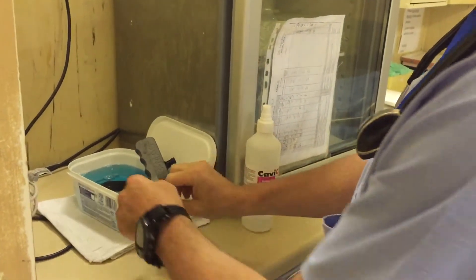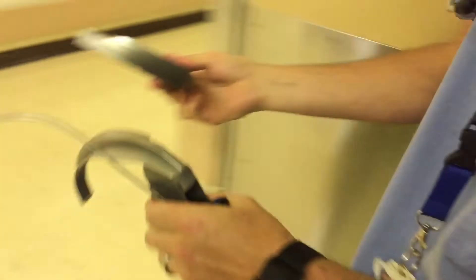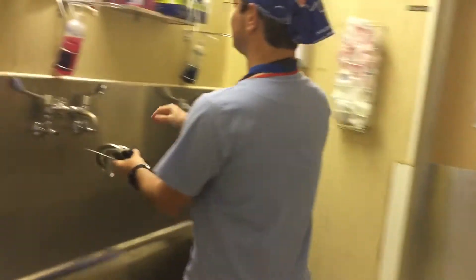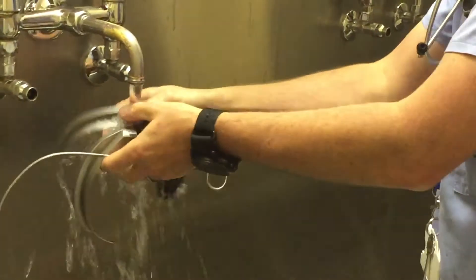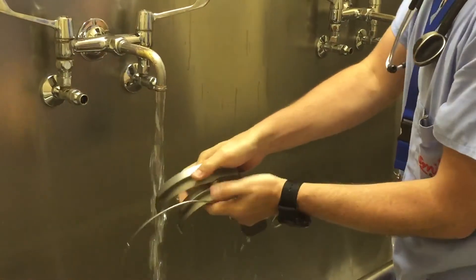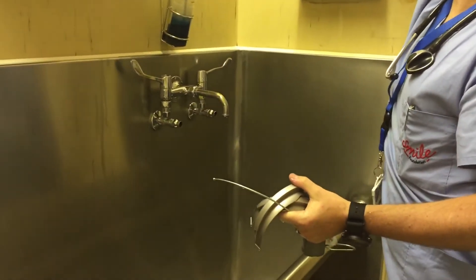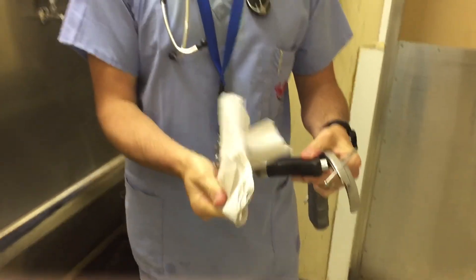When it's been sitting in there for 15 minutes, we're going to take it out. Would you like to lick some Cidex? The answer is no. So we're going to rinse it off under running water. You want to make sure that there's no Cidex in the contacts. And when that is done, just go to towel and dry and replace them on the cot. That's how it's done.